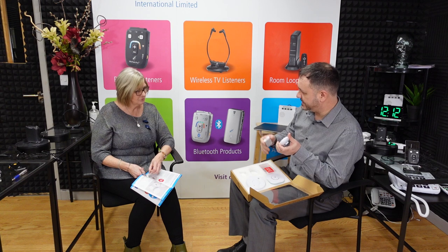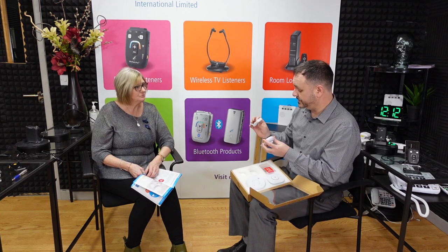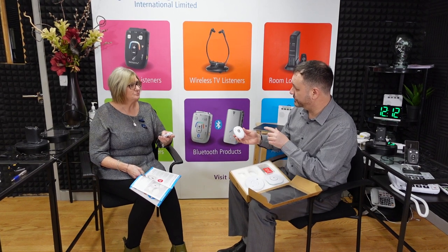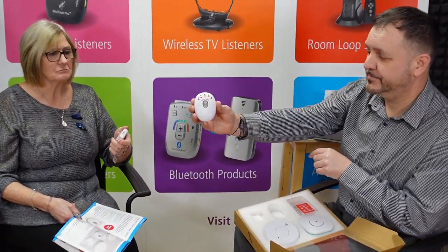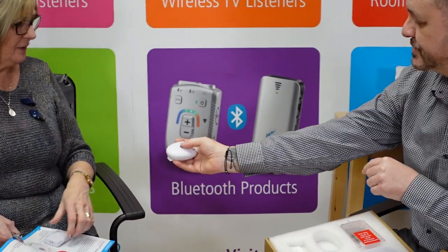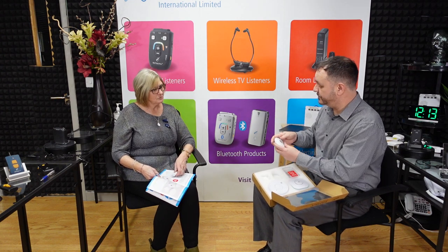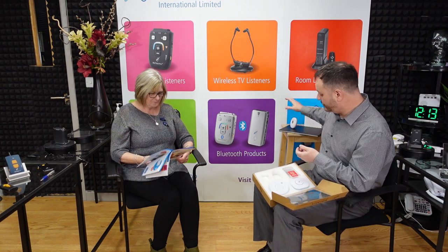It's a four-in-one unit. You get the vibrating pager, the smoke alarm, the sound sensor, and the bell push — everything's included. For example, if you press the bell push, that's all you need to do, and it will trigger the vibrating pager. So if I'm in the kitchen and Chris is in the other room, if he's got the pager with him it'll alert him since he can't hear it properly. Then just press the centre button to reset it and it stops. You can see that when the bell push was pressed, the bell push icon lit up on the pager.